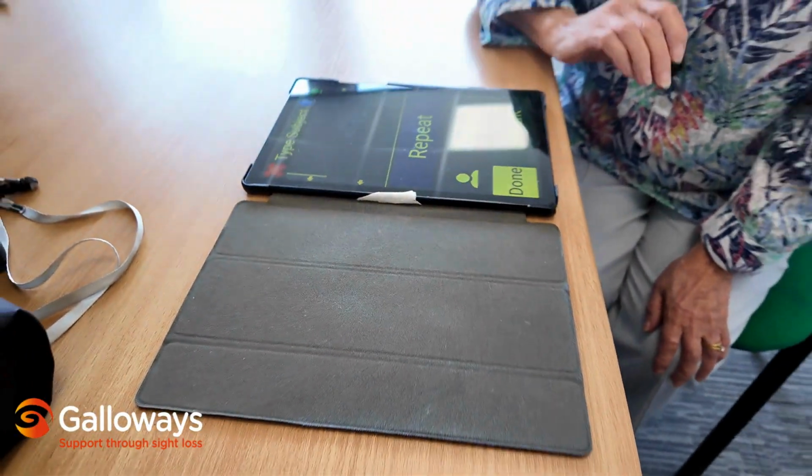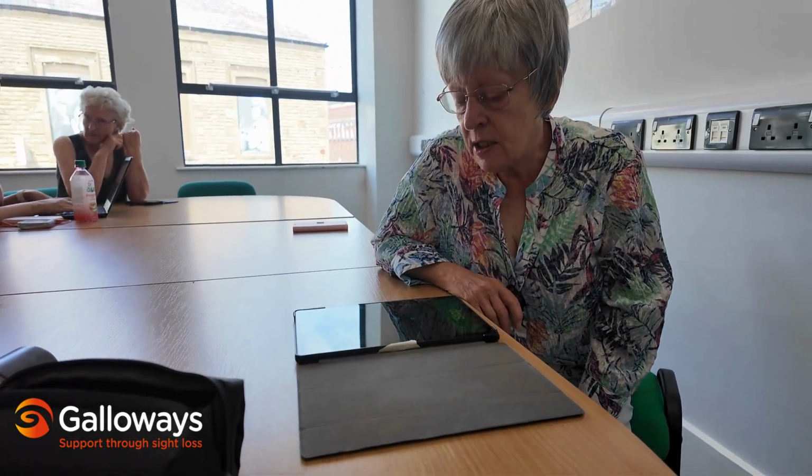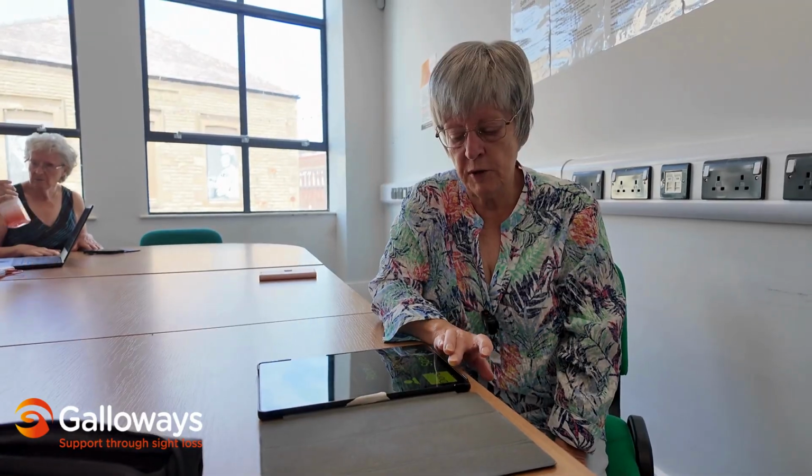And this is going to tell me the subject. So if I tap that, test email. Test email. And then all I have to do in the bottom left-hand corner is tap that, done, and it's done. And now I can do, yes. Hi Nadia, this is a test email. Thank you, Kay.